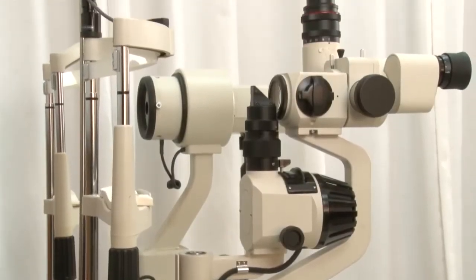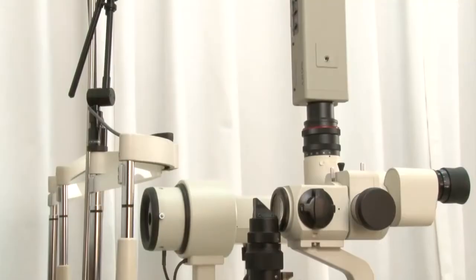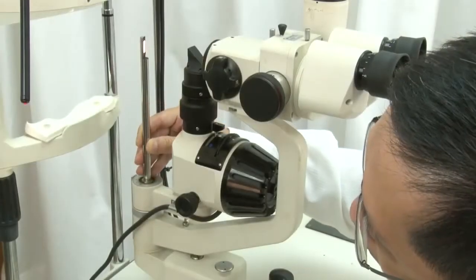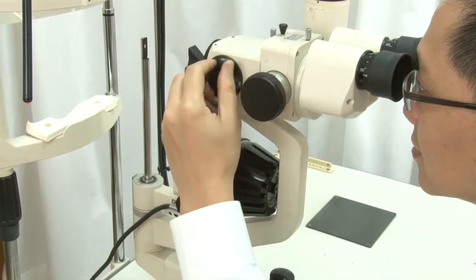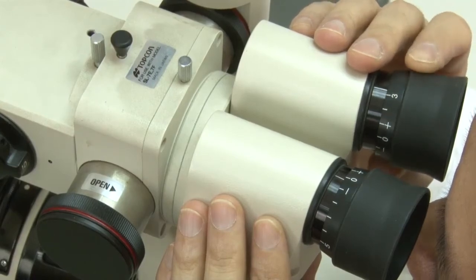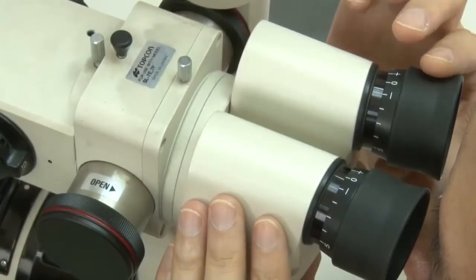Before using the slit lamp, you need to adjust the focus of the eyepiece. Insert the focusing rod into the hole at the common axis of rotation. Then narrow the illumination to make a slit of similar width as the rod, and adjust the view to the lowest magnification. Now turn the eyepieces fully counterclockwise while viewing the illuminated focusing rod, slowly turning the eyepiece with the graticule clockwise until it reaches sharp focus.